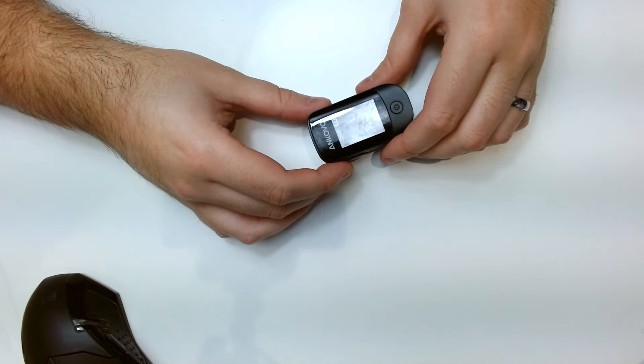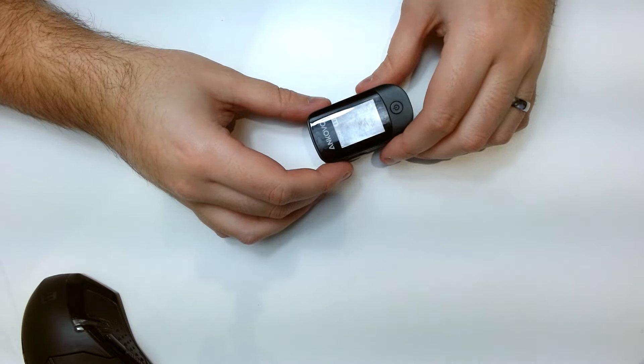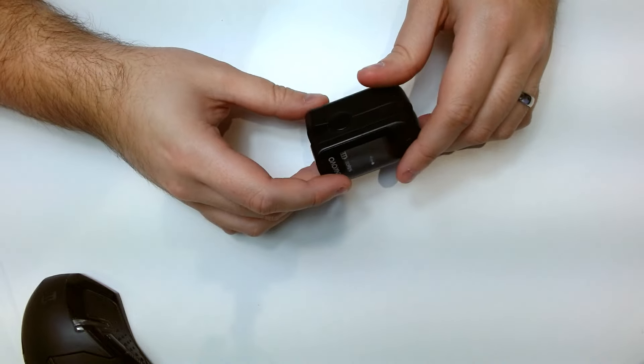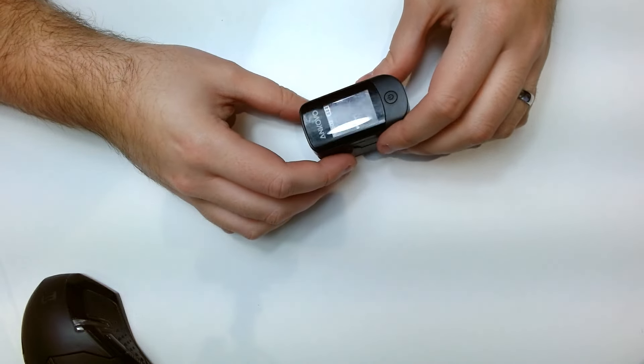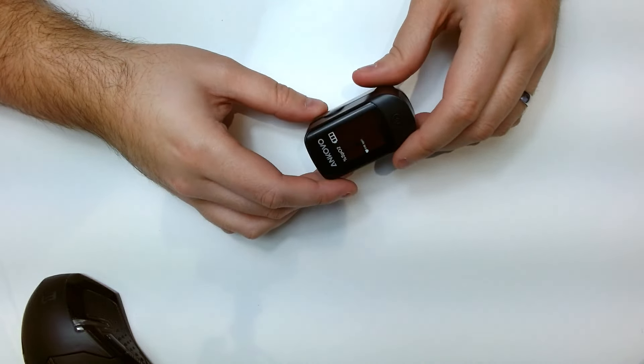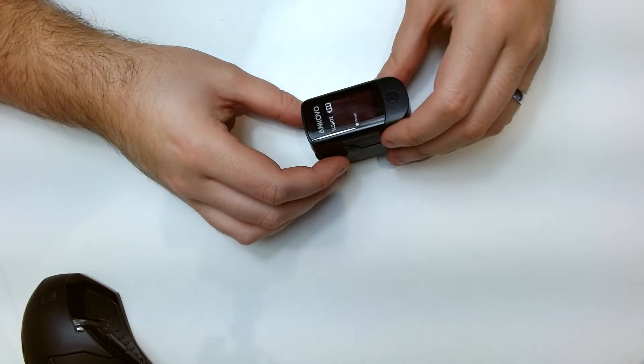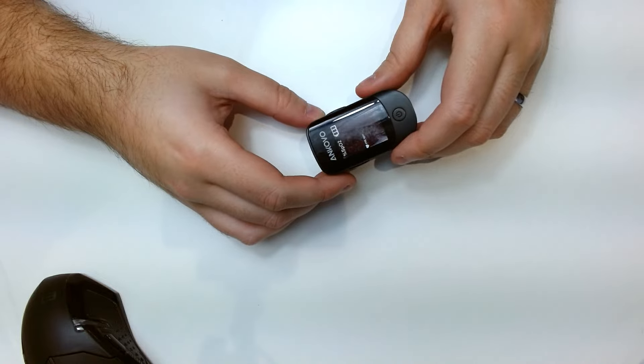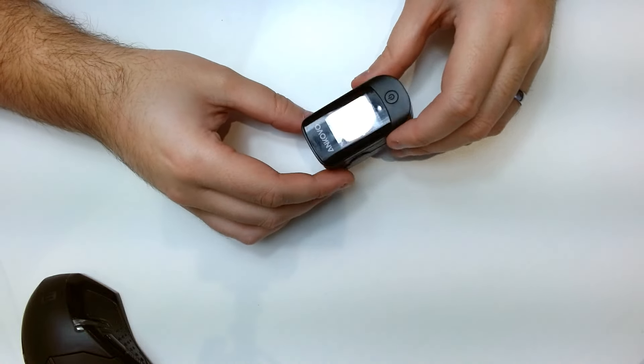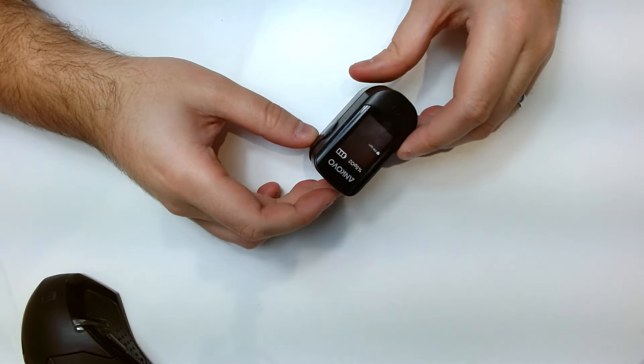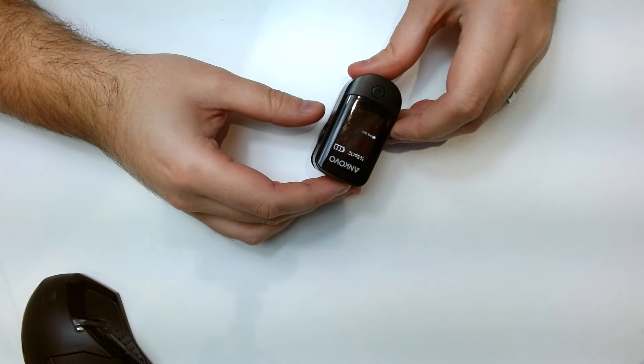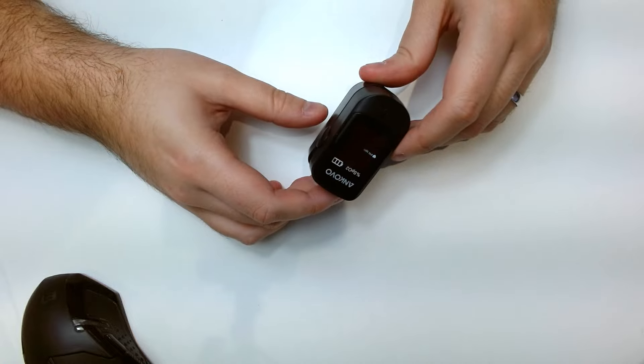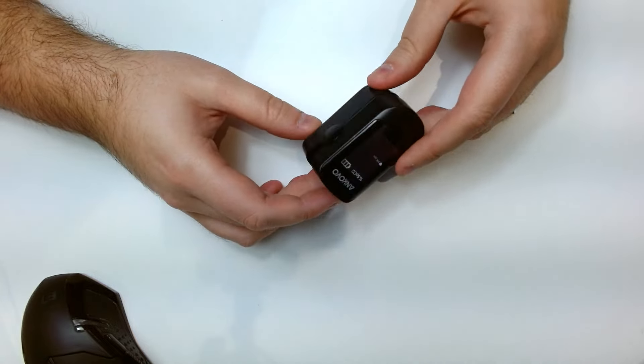Oxygen Monitor with Lanyard and Batteries in black. I will leave a code and a link to purchase this if this is of interest, but this is something that I've been using for about four months now.